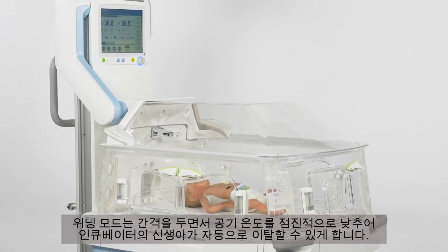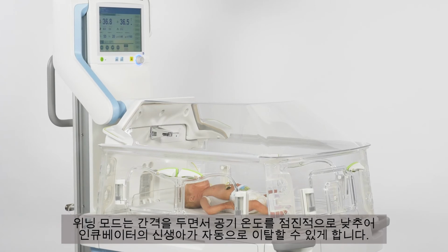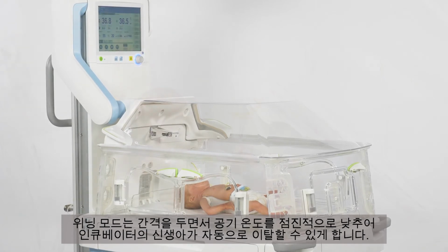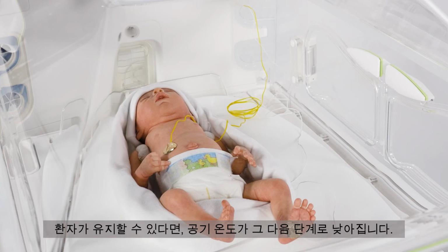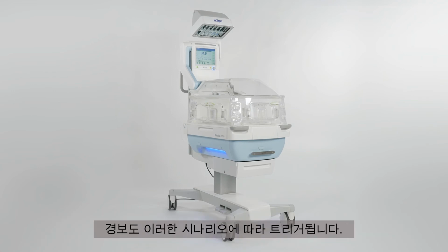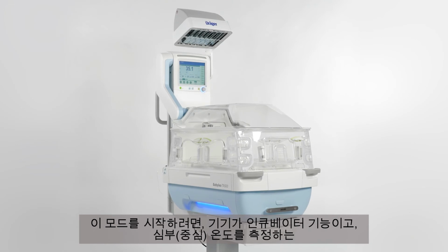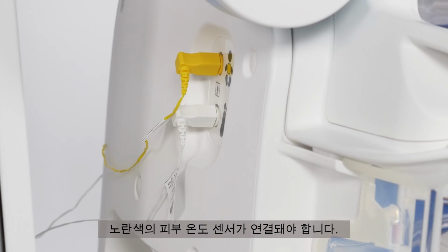The Weaning Mode provides the possibility to automatically wean the baby from the incubator by gradually reducing the air temperature in intervals. The skin temperature is measured to check if the patient can maintain the required skin temperature on his or her own. If the patient is able, the air temperature is reduced to the next step. If the patient is unable, the patient compartment is heated back up to the air temperature that was in effect before. An alarm will be triggered in this scenario. To begin this mode, the device has to be in incubator operation and the yellow skin temperature sensor, which measures central skin temperature, needs to be connected.